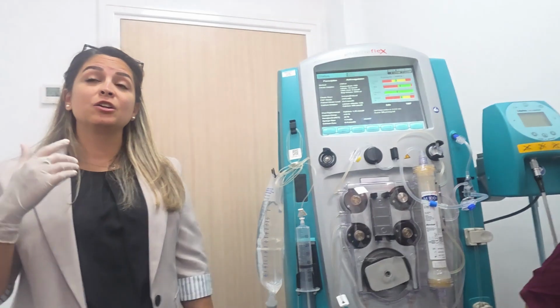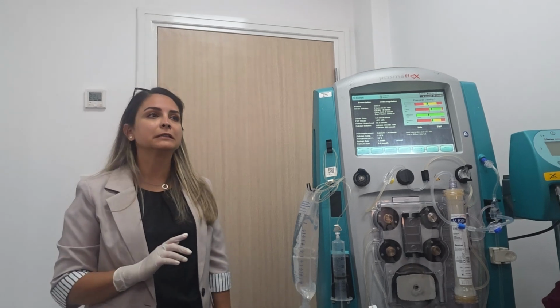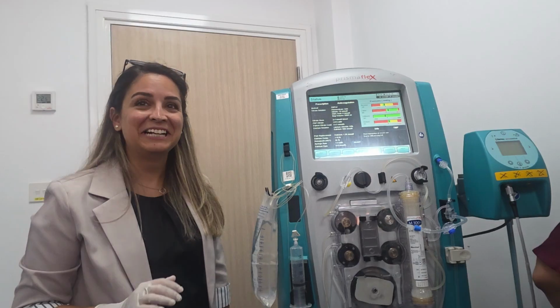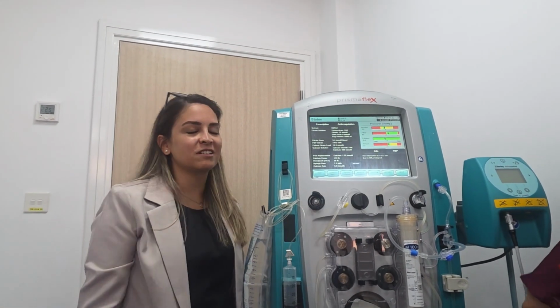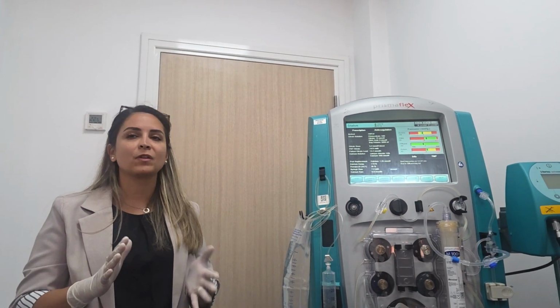Do you know the significance? Are the pressures normal or not normal? This abnormality will alarm. There is a color. Correct. Access, is it negative or positive? Negative. Return, positive. Okay.